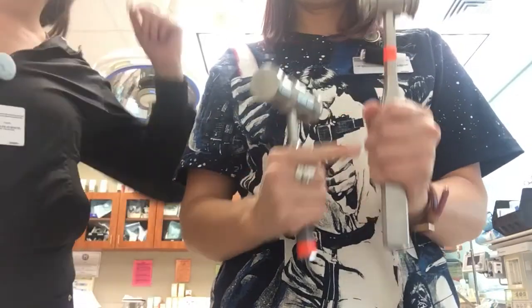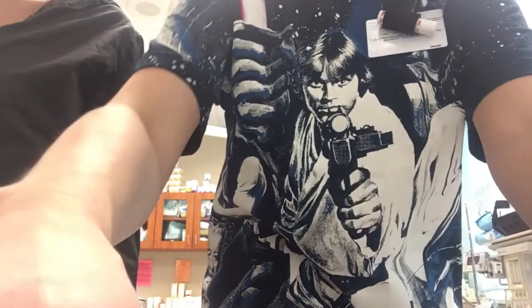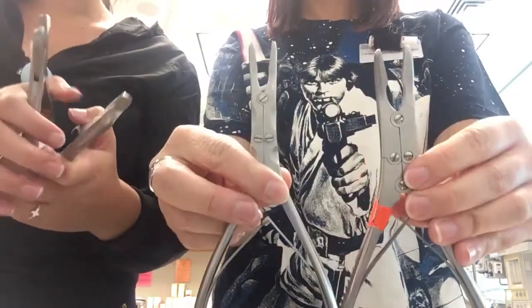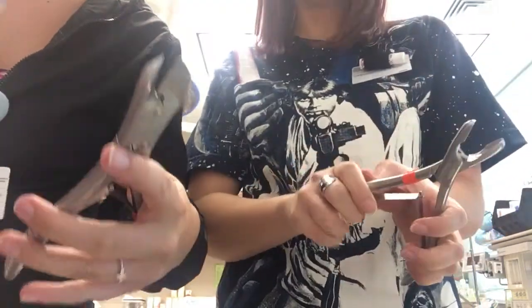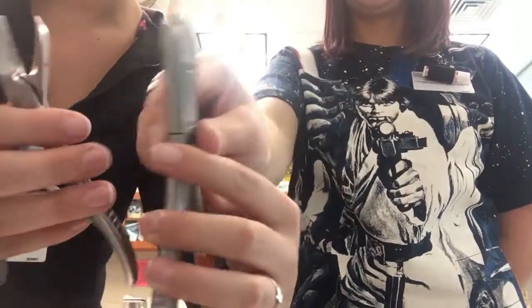These are mallets. This is the large by the size of the handle, and this is the small. But on the test you just need to know it's a mallet — that's a quote from Miss Peck. So these are all bone cutters. They're flat on one end and curved on the other, and they're pretty sharp. This one's just smaller than that one, but they're bone cutters.